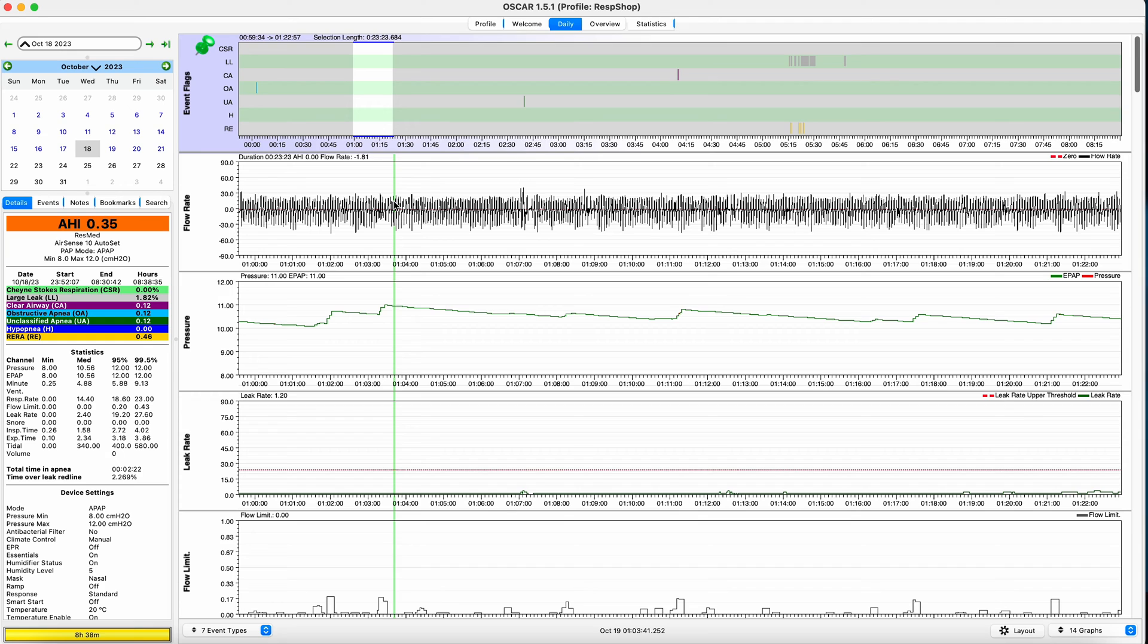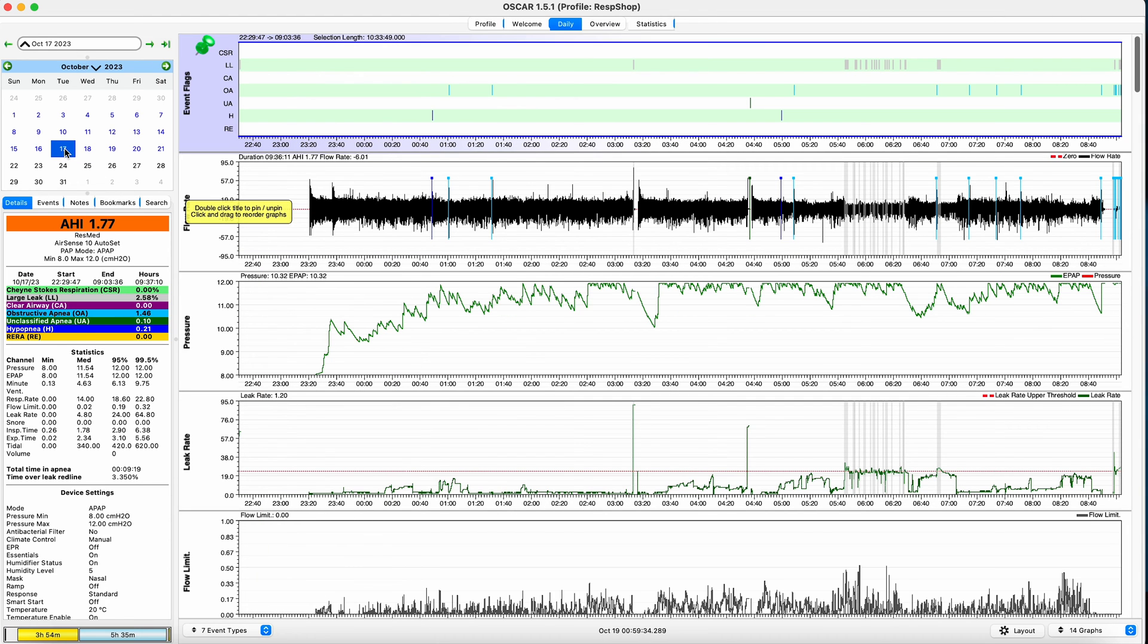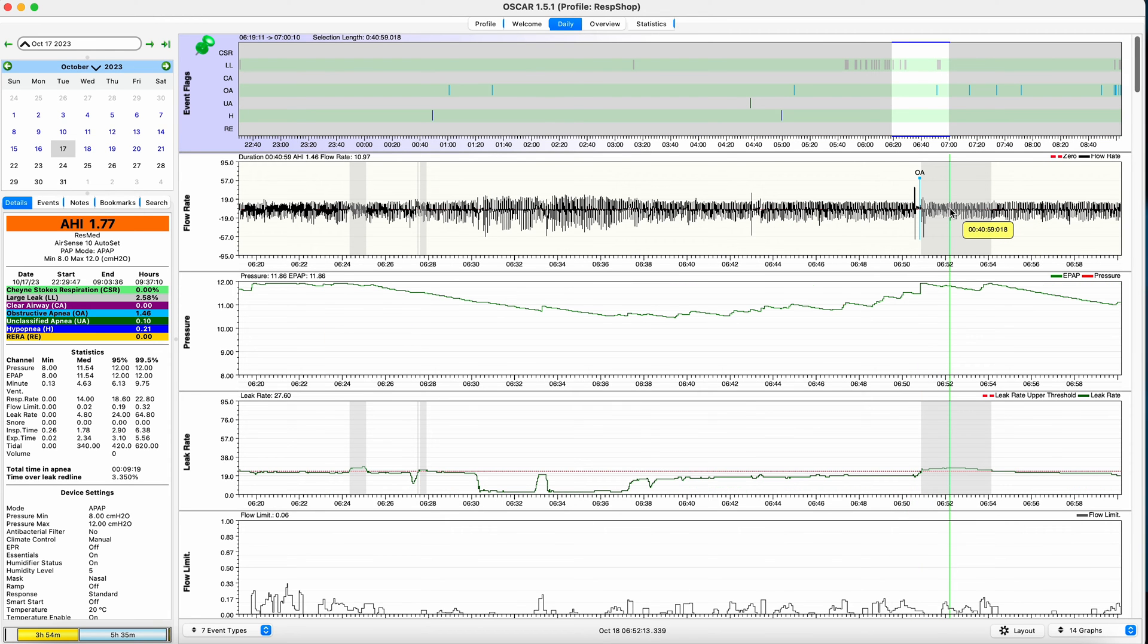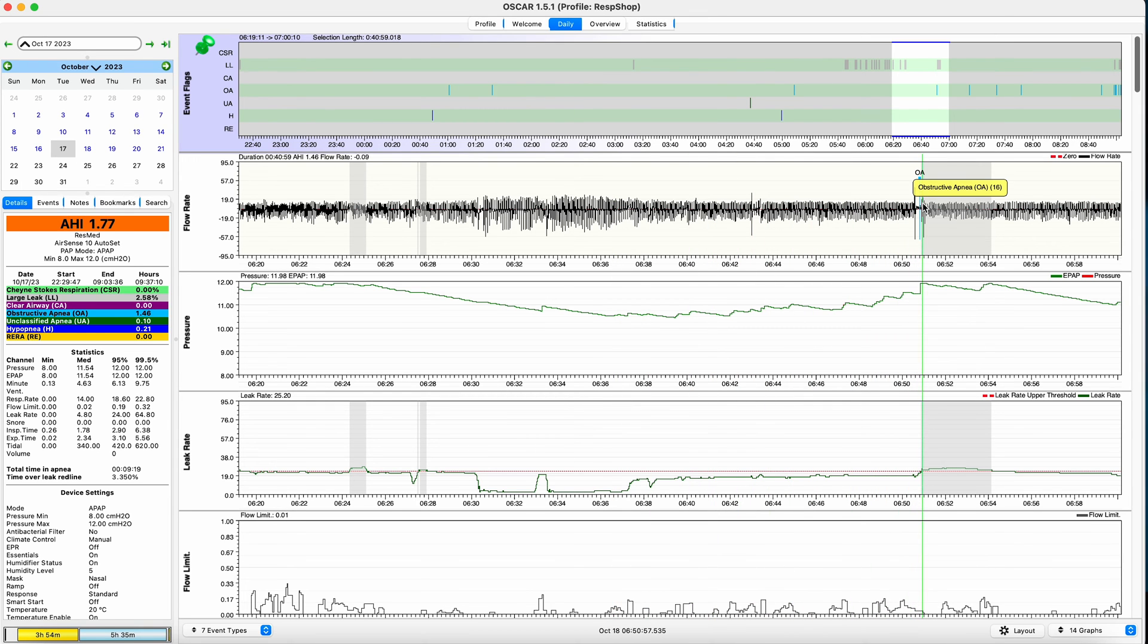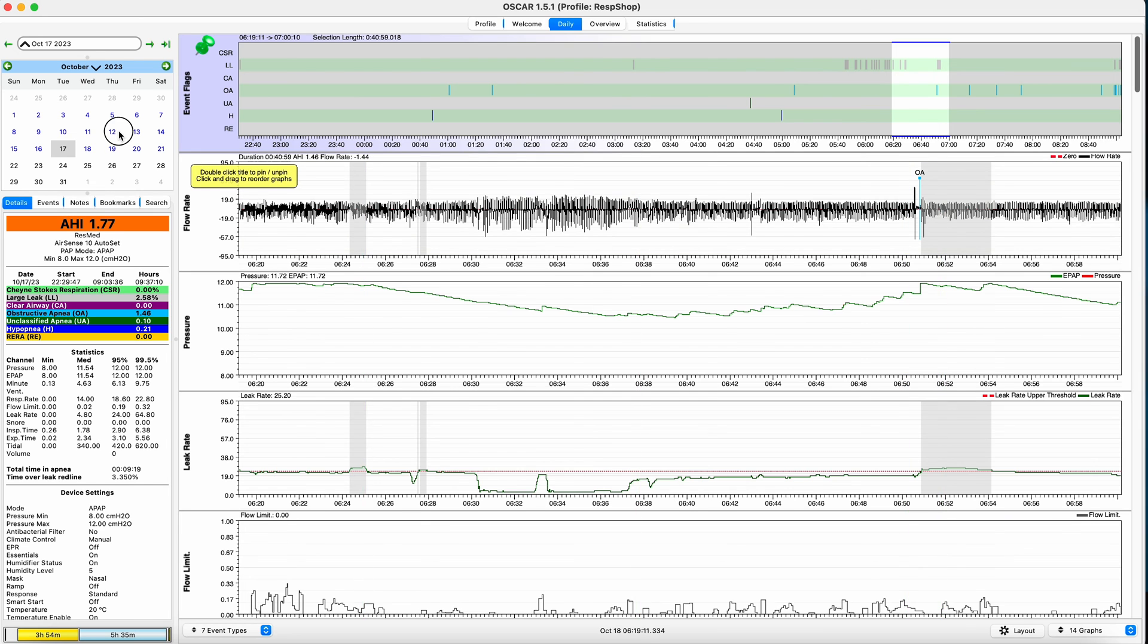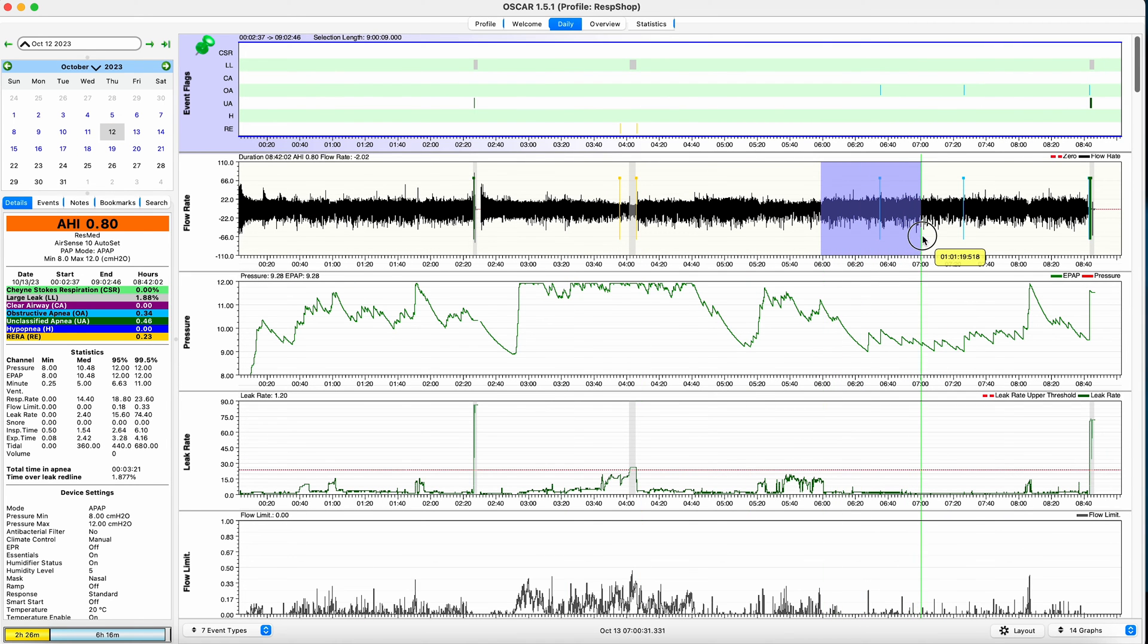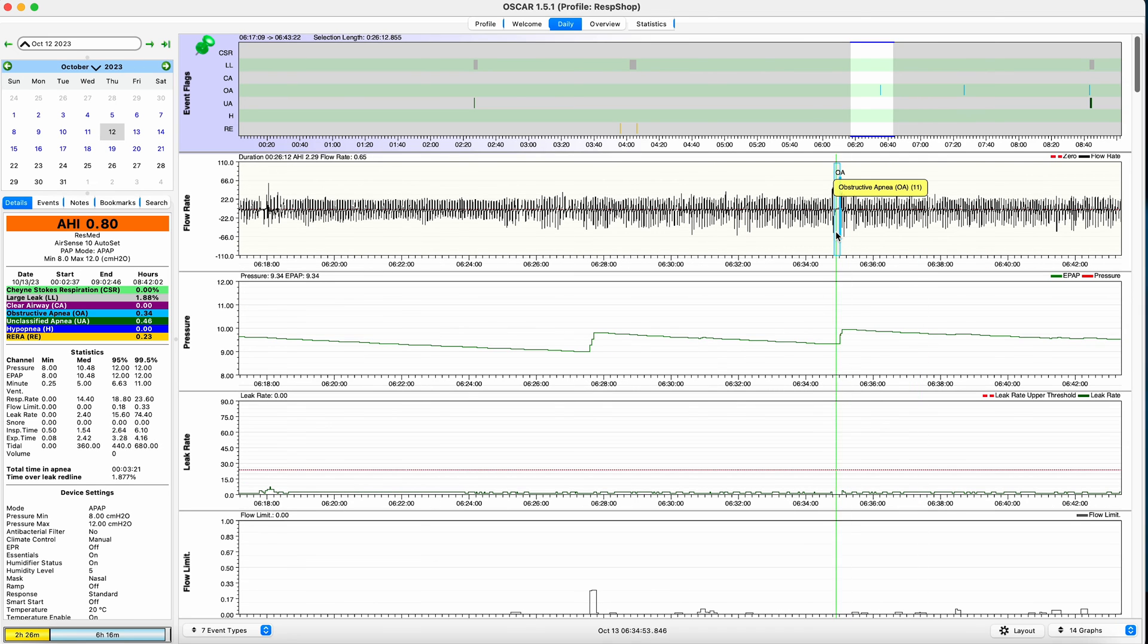You can use this chart to look at what happened where there are event flags and to determine what kind of issue may have caused it, as the flow rate shape in conjunction with other data that you can see on the tracks can provide a good indication of what went wrong. For example, a flow rate that shows a gradual reduction of airflow, both inhalation and exhalation, followed by a sharp recovery spike like this, is a clear sign of positional apnea or chin tucking. Whereas a normal expiration that suddenly cuts off to zero suggests a case of palatal prolapse, which is when the soft palate closes off the airway entirely.